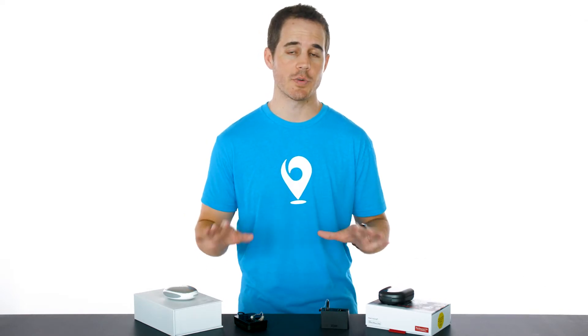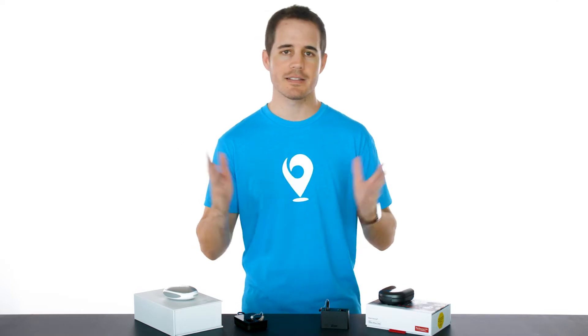But I get that this can be a hassle, especially if you have dexterity issues or vision problems — it's a lot easier in that case to use rechargeable hearing aids. In front of me here I have two types of rechargeable hearing aids, and this is what you'll have to choose between. They each have their pros and cons, so let's get into them.